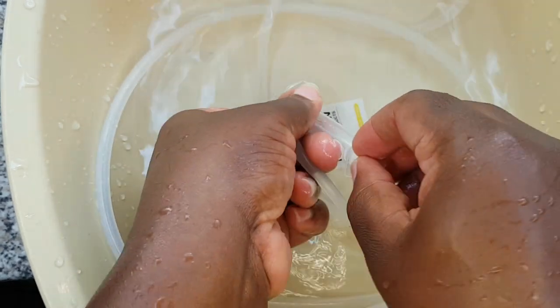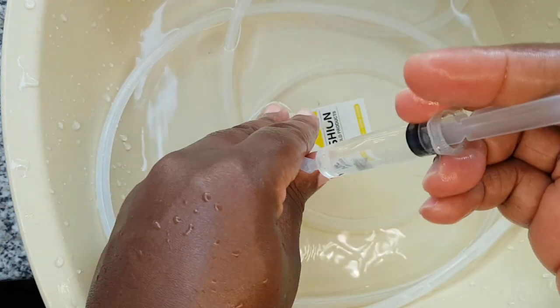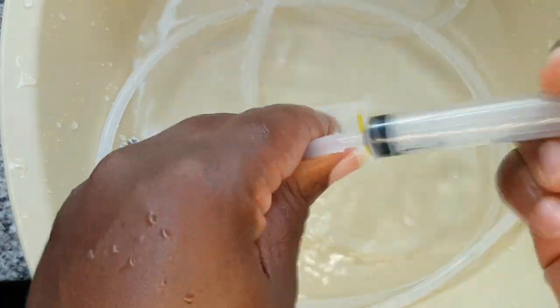Guys, make sure that your tubings are super dry before you store them.